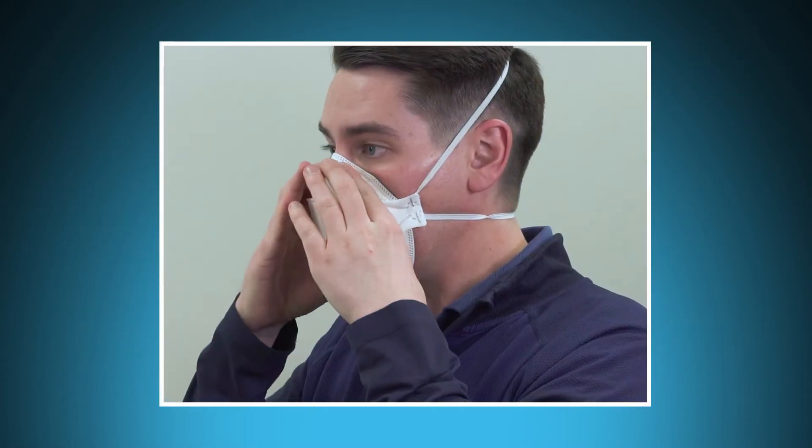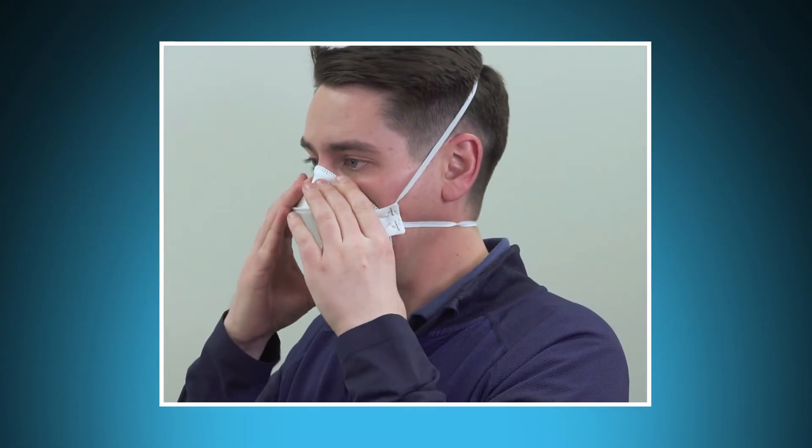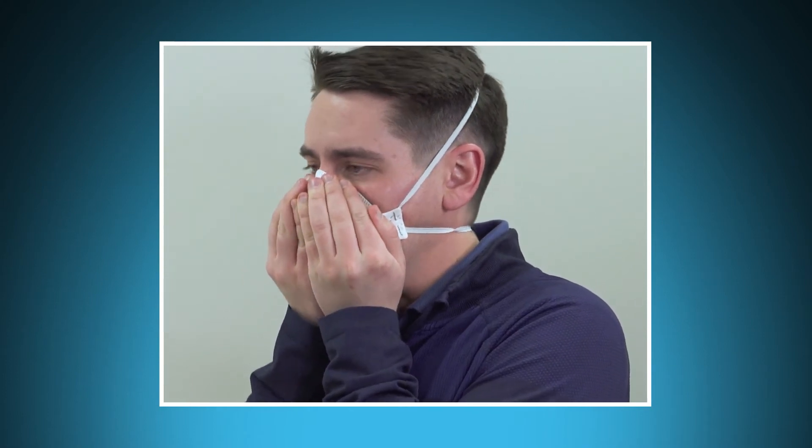To prepare respirator wearers for the fit test with each method, the respirator wearer must complete a seal check, then a comfort assessment by donning their respirator and wearing it for five minutes to allow it to properly seat and seal to the face and gauge comfort.